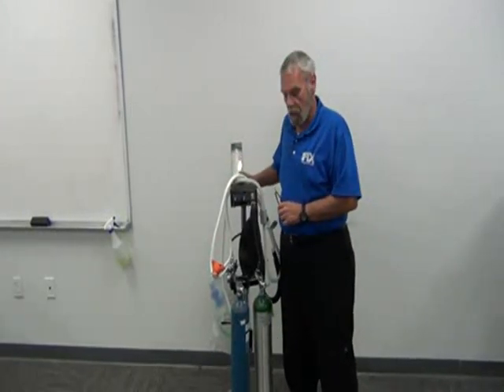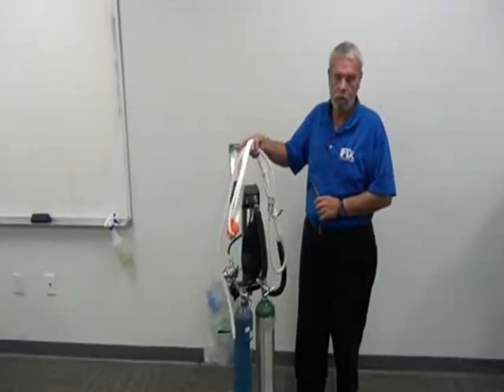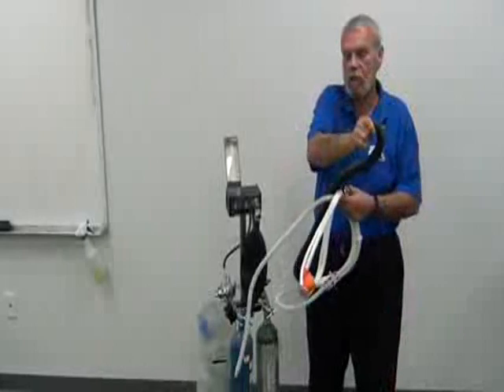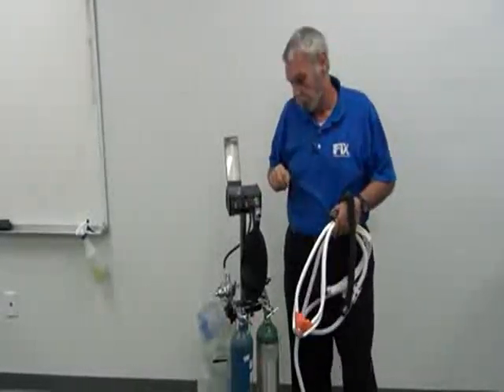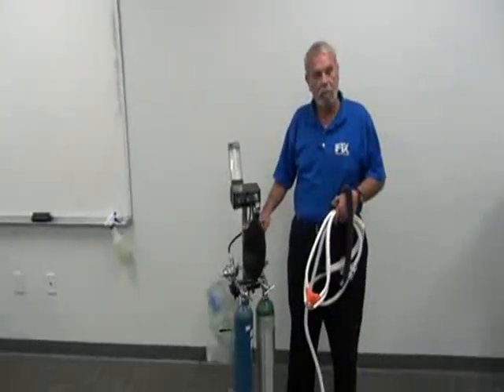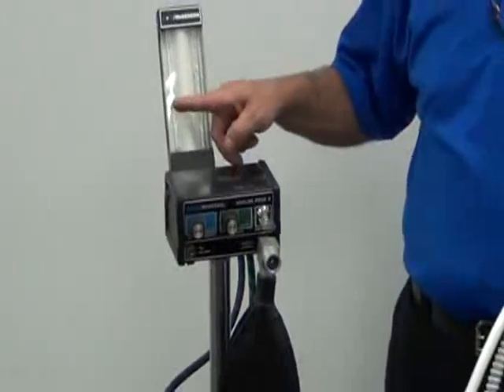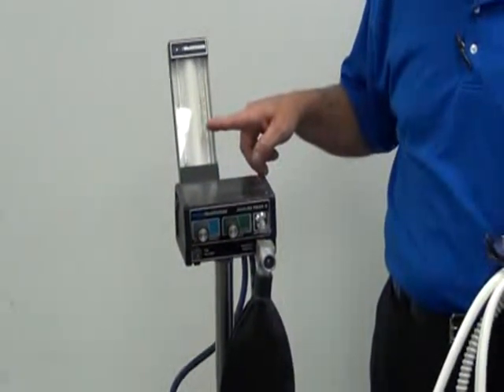To administer the nitrous oxide, we use an apparatus called a flow meter. You will hear this called various different components. You'll hear it called a nitrous head, you'll hear it called a flow meter, you'll even hear it called a nitrous machine. This essentially is the flow meter from my hand up. You can see your LPM guides, which means liters per minute. The blue for the nitrous, the green for the oxygen of how it's administered.